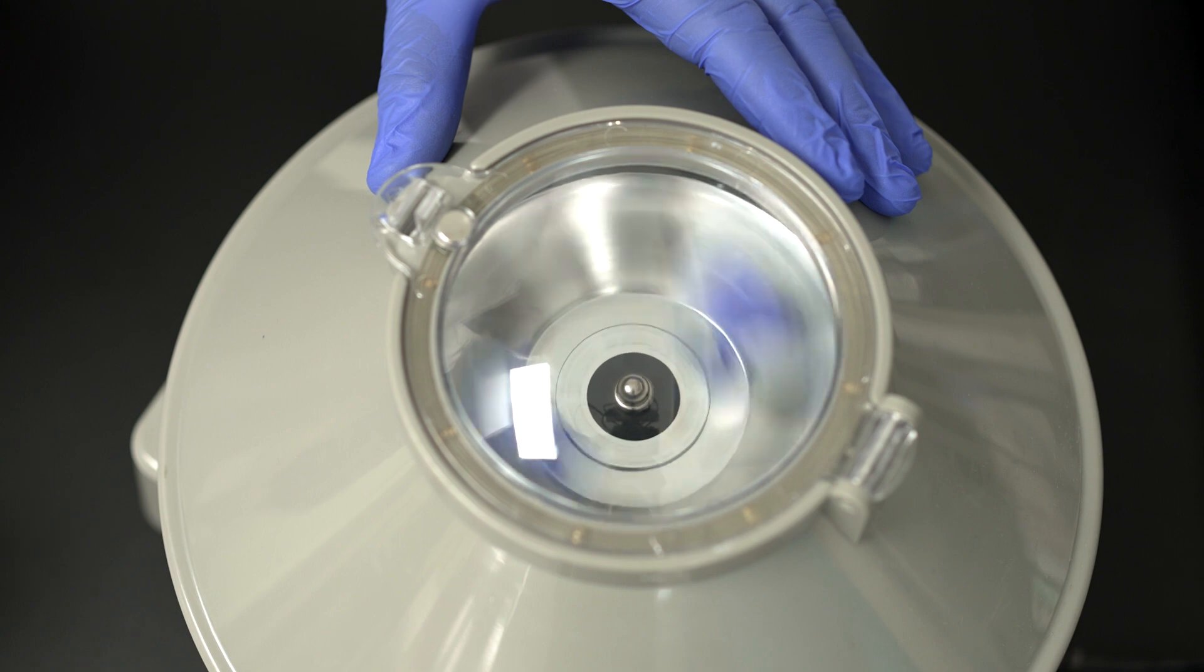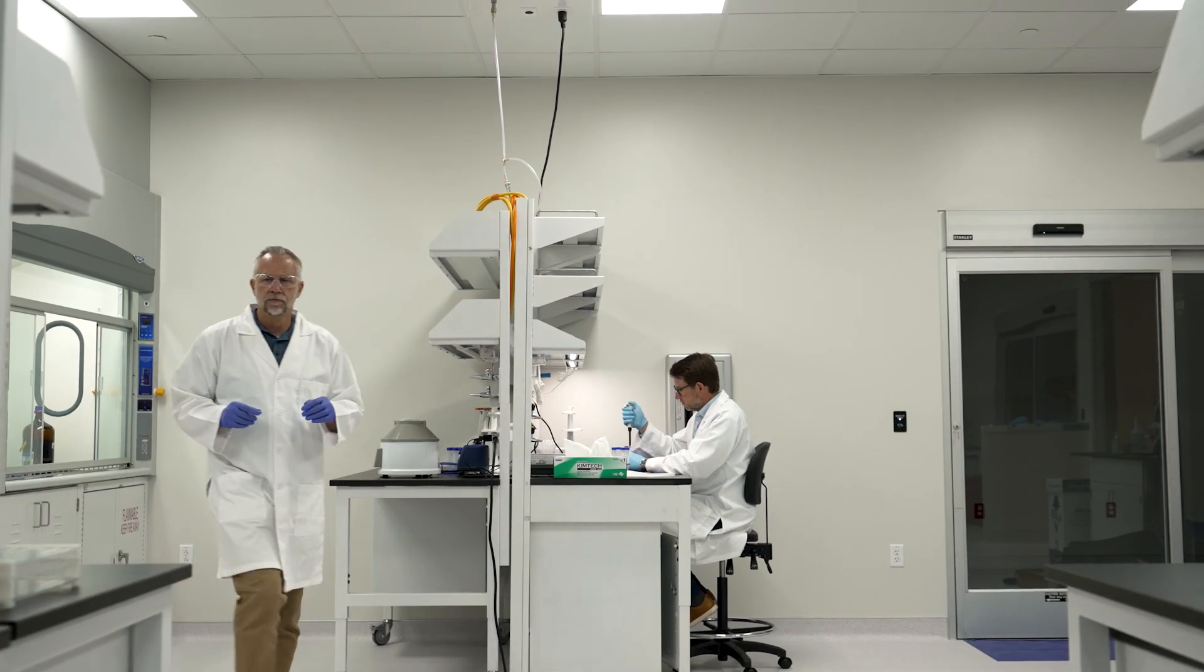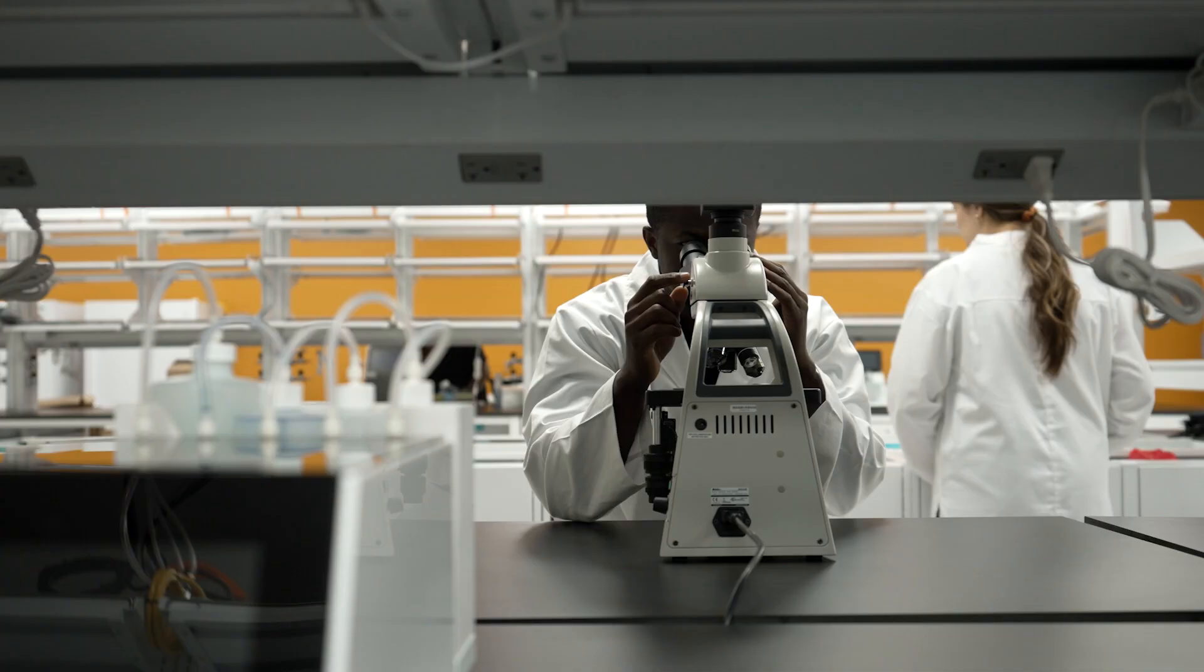As a lab director, the biggest issue that you're facing today is labor. You've got people retiring, the younger generation are going into things like genomics, and so the industry can't go forward without something to help it out.